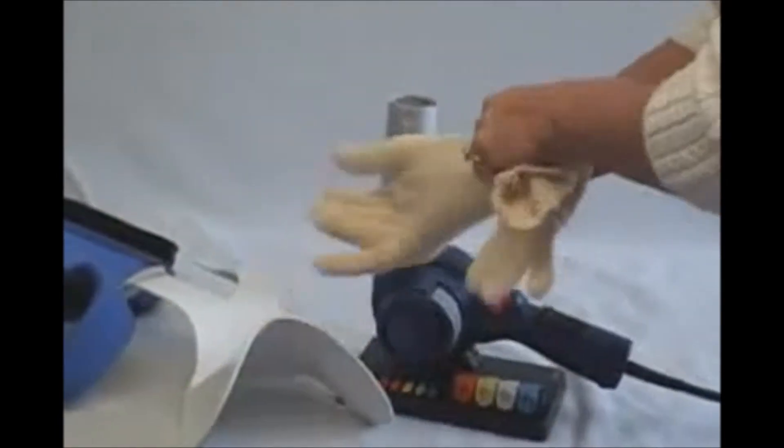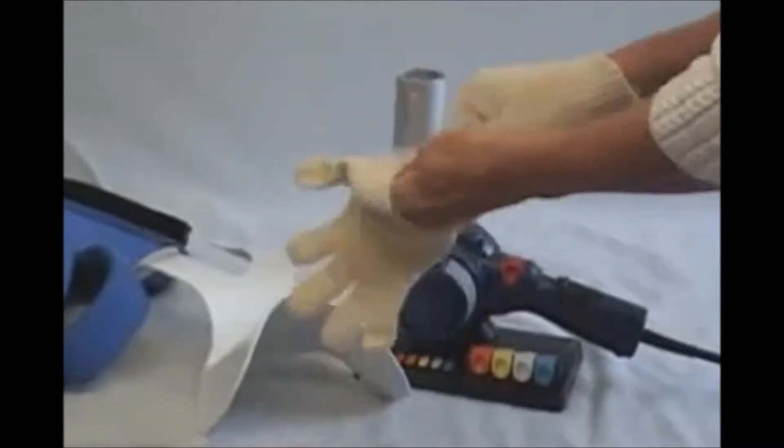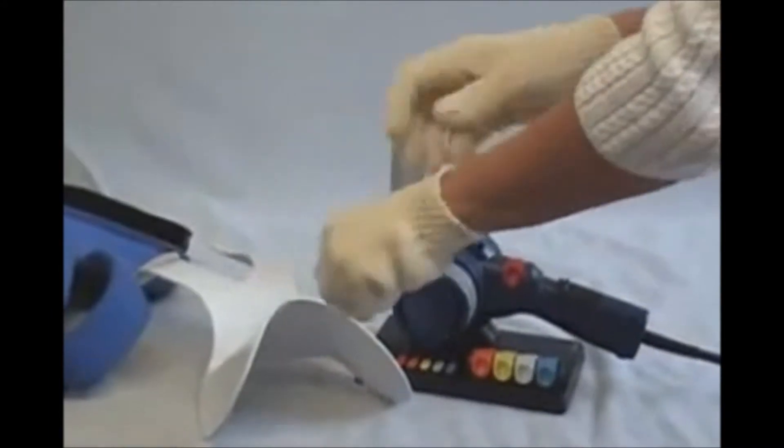Always wear gloves to protect your hands. Heat guns are very hot, and the plastic will stay hot until it cools.